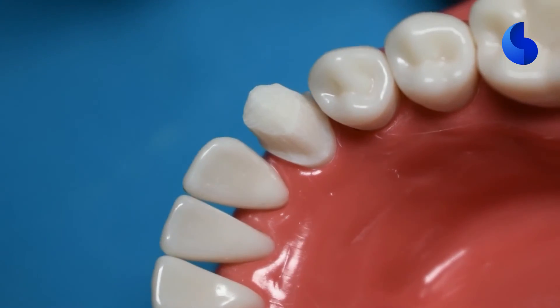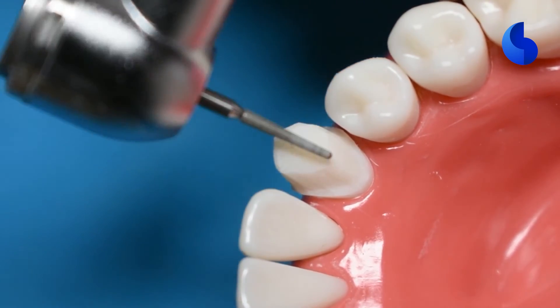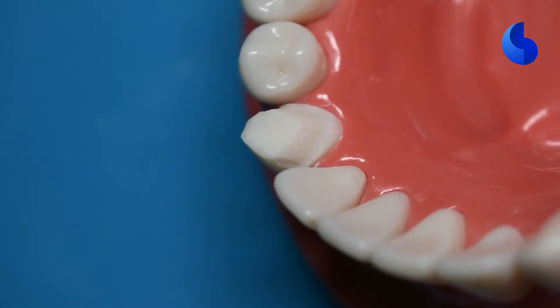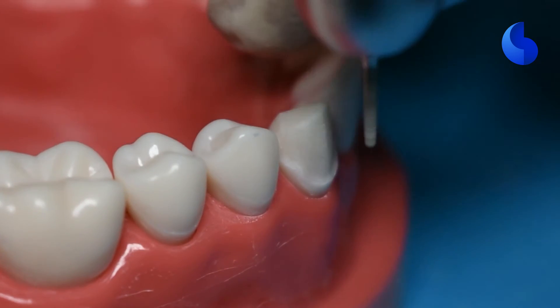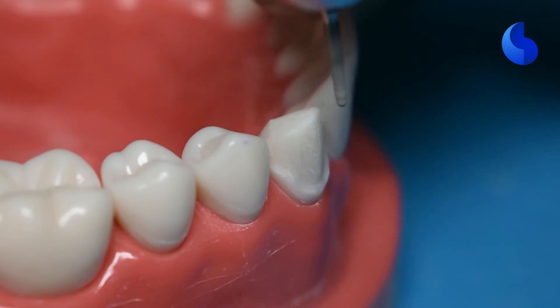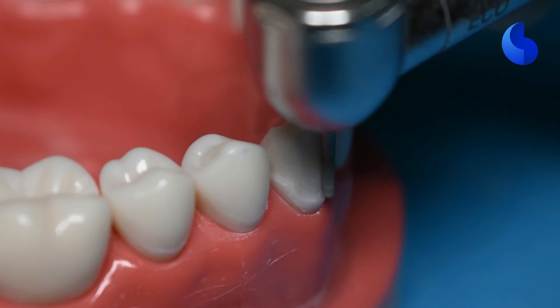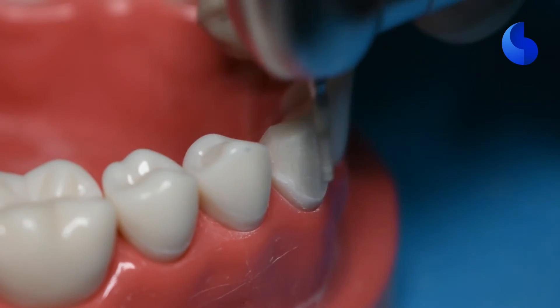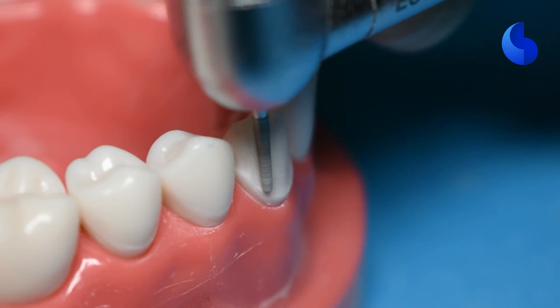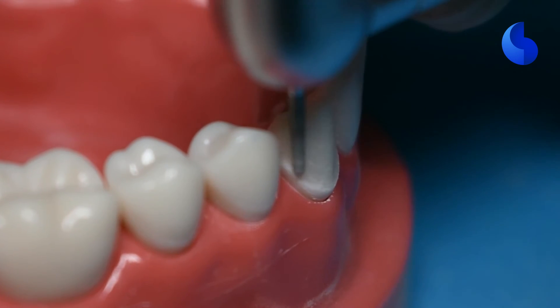You could use depth orientation grooves on the lingual surface as well. Right now we did a planar reduction, eyeballing the preparation to see if we're achieving the width we're looking for. The 856-016 bur has a diameter of 1.6 millimeters right at its tip, so the more you practice, the more you'll realize how much you're preparing — or you can also use a periodontal probe to measure that. Once you've completed your lingual reduction, go back to your facial surface and refine the preparation while moving your margin more gingivally. We gave ourselves some wiggle room so that we can bring it down when refining the prep. We're moving it gingivally and ensuring that our margin is not going further gingivally or getting wider — we are simply refining it. Take your bur interproximally to create a smooth flowing transition between the lingual and the buccal surfaces.